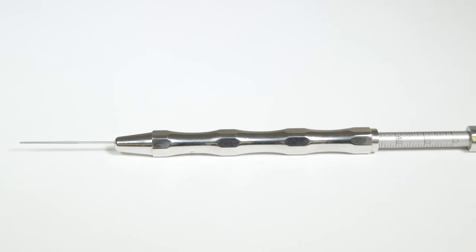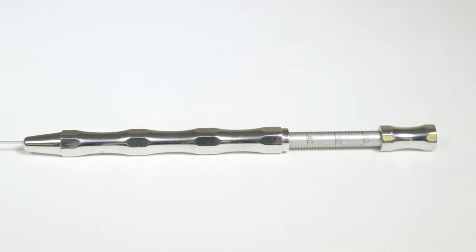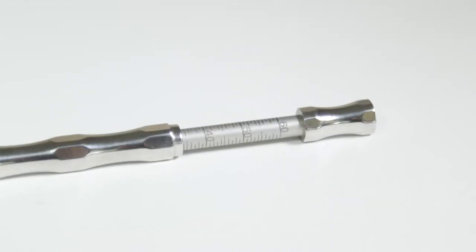When the pilot hole has been drilled, the surgeon will measure the depth of the hole using the depth gauge. The depth gauge has a slender probe with a fine hook and a scale on the moveable section of the device.